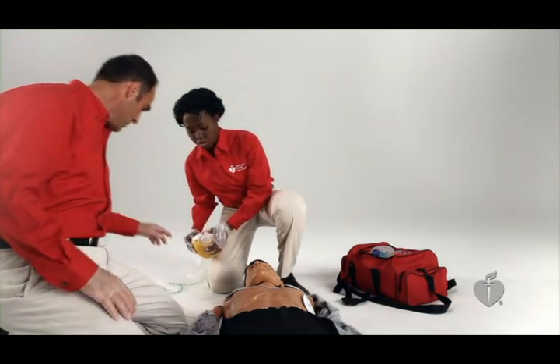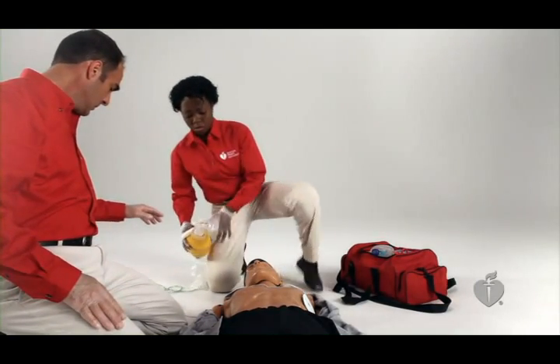If the AED recommends a shock, it will tell you to clear the victim and push the shock button. Again, be sure no one is touching the victim to avoid injury to rescuers. Then loudly state a clear the victim message. It can be something like, "Everybody's clear," or simply, "Clear." Perform a visual check to ensure that no one is in contact with the victim.